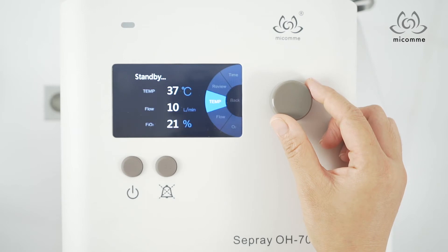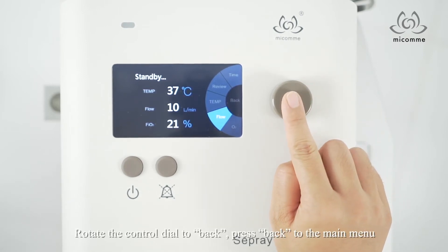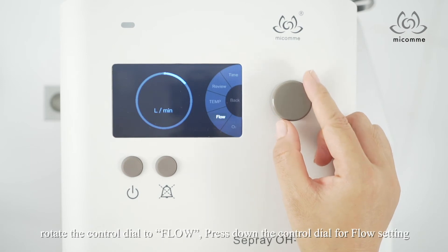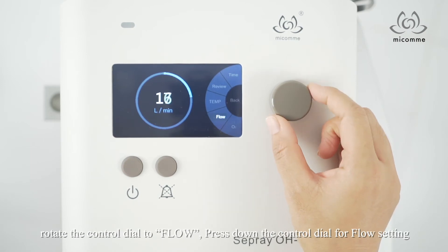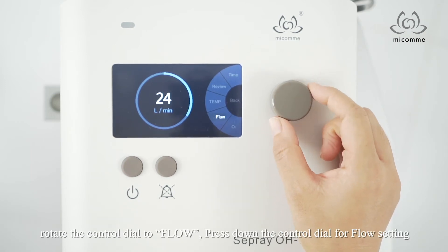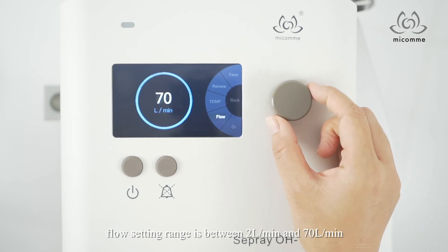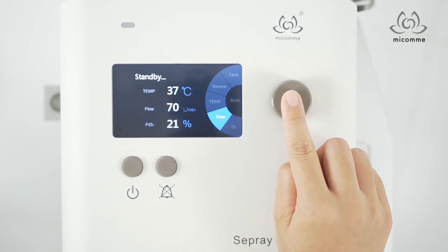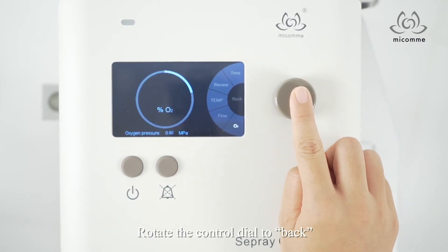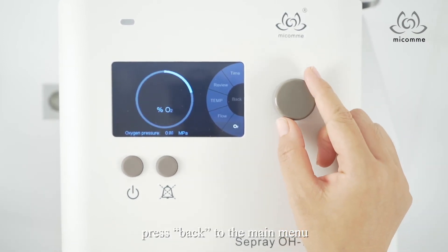Rotate the knob to back and press back to the main menu. Rotate the knob to flow and press down the knob for flow setting. Flow setting range is between 2 liters per minute and 70 liters per minute.